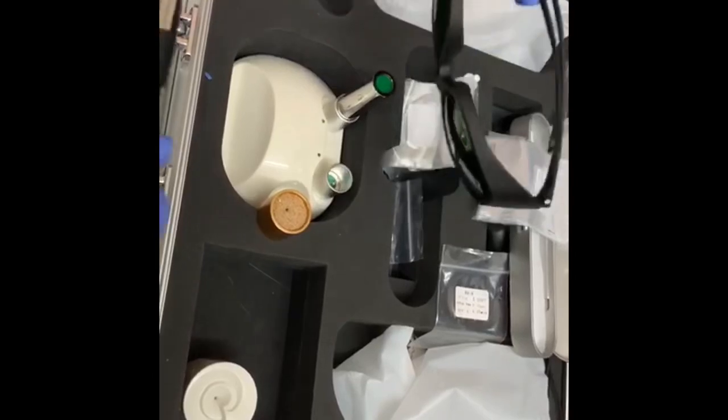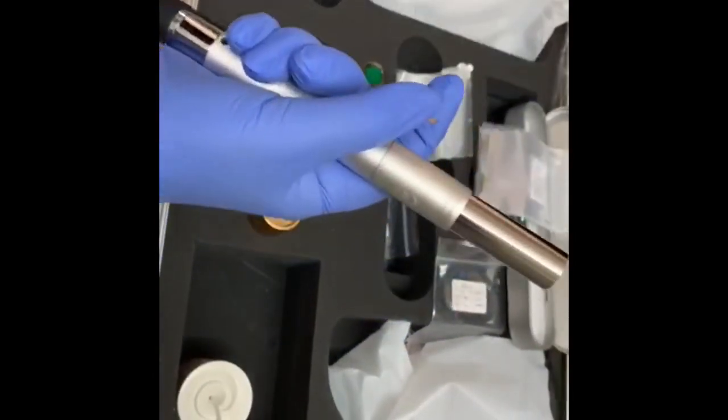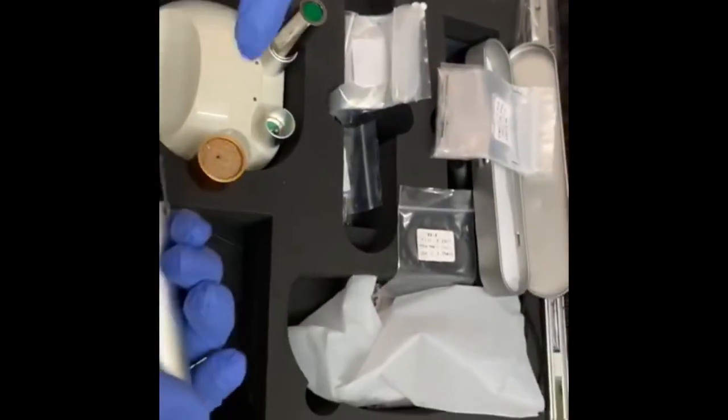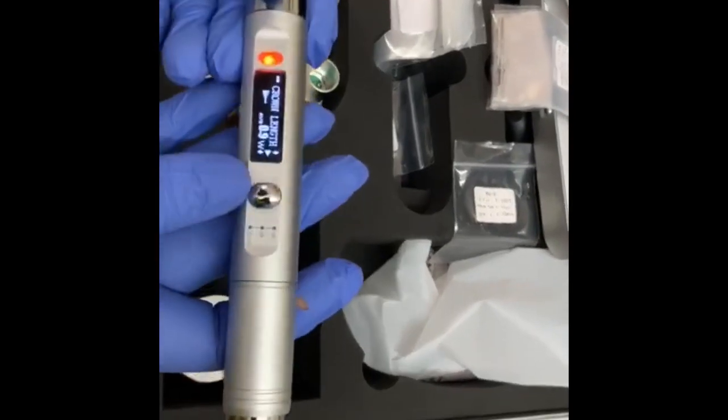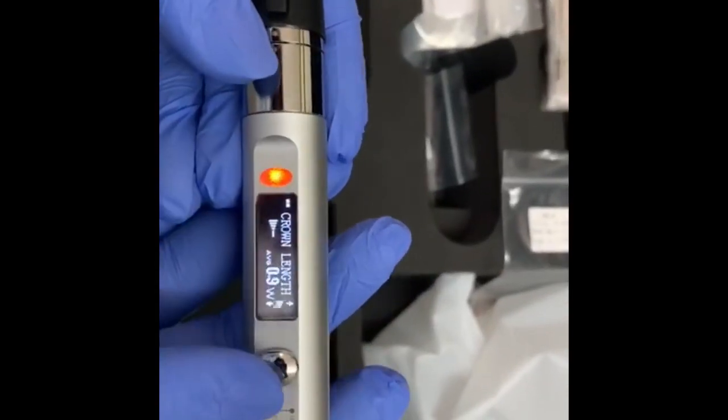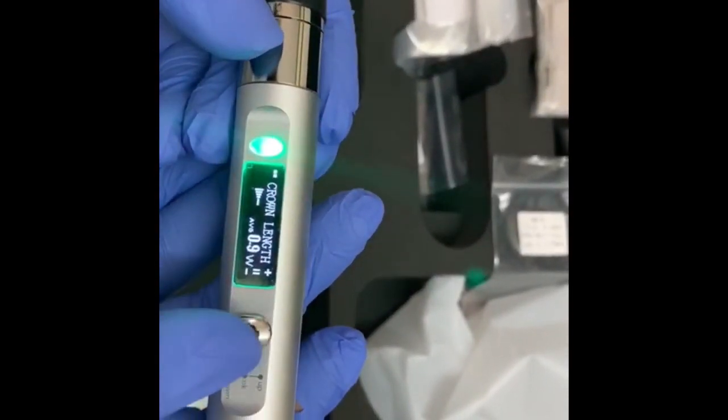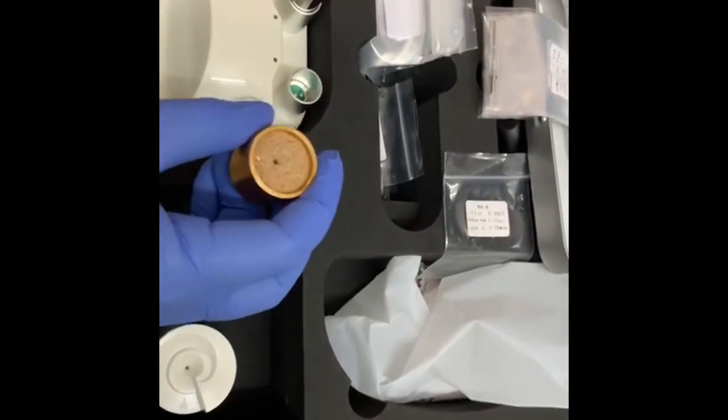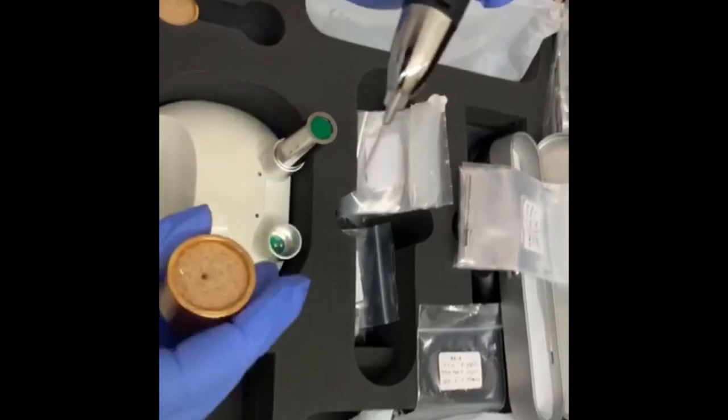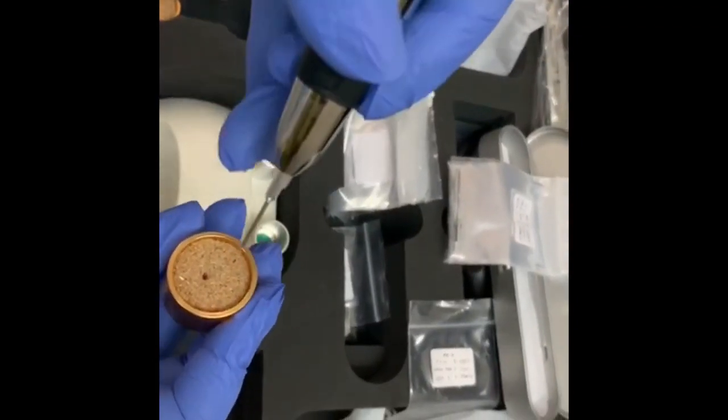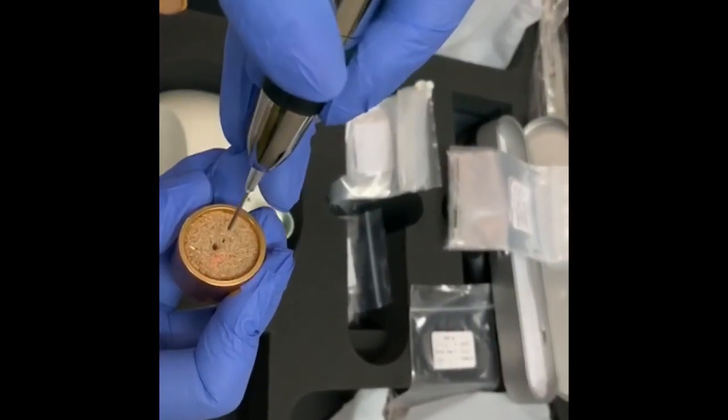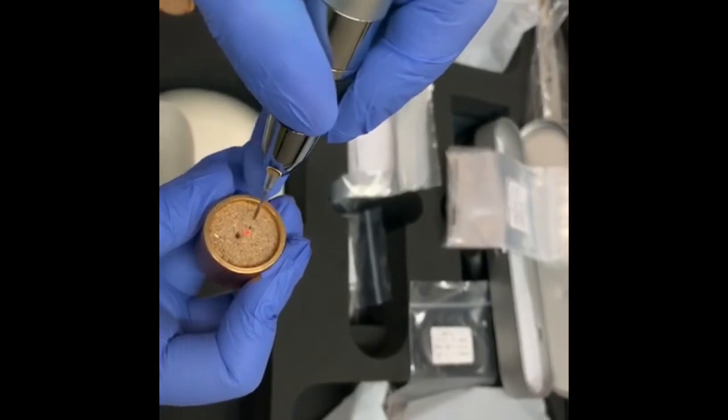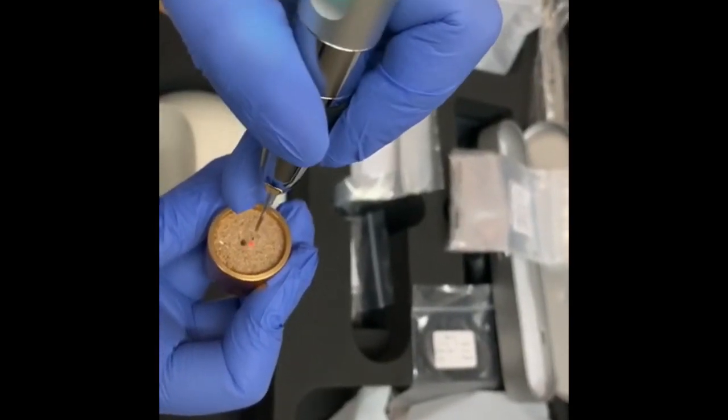Before that we need to wear these glasses while doing any of your work, even on your initiation block. So you can see here it's orange right now. And now I'm pressing this green. This is the main button which while doing your operation on your patient or your work, you can see there's a light coming over here.